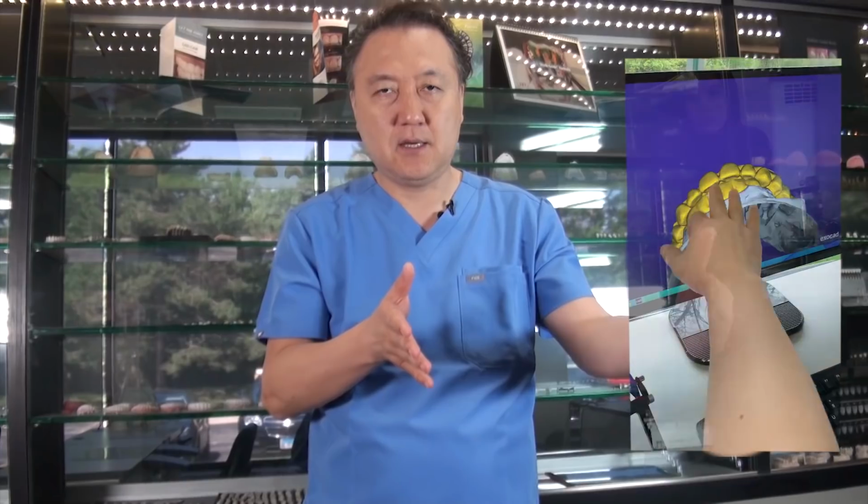Because we can diagnose the dentition, shorter teeth, increased length, and what their expectation goal is. This is treatment plan related. So if I want to make really good temporizations, I always want the diagnostic model mounted together. That's number one.